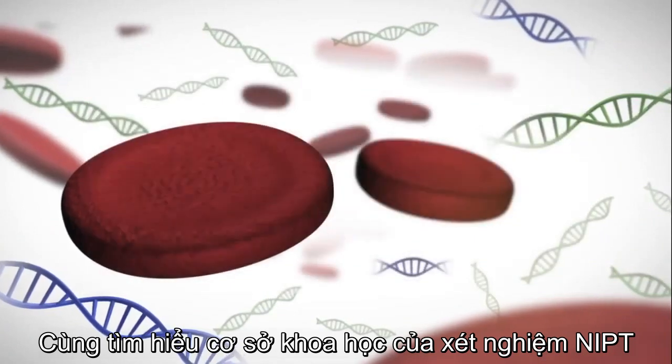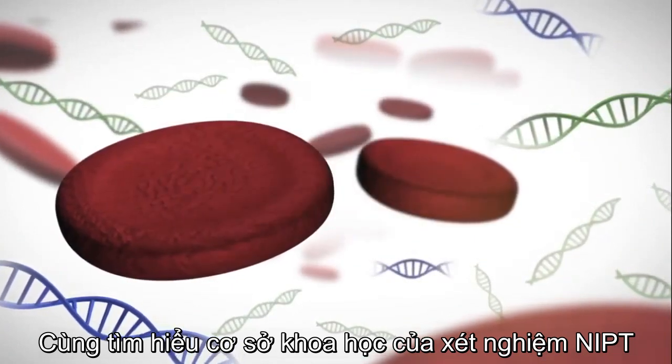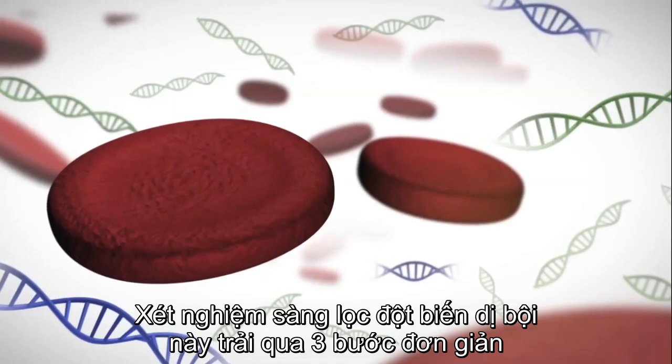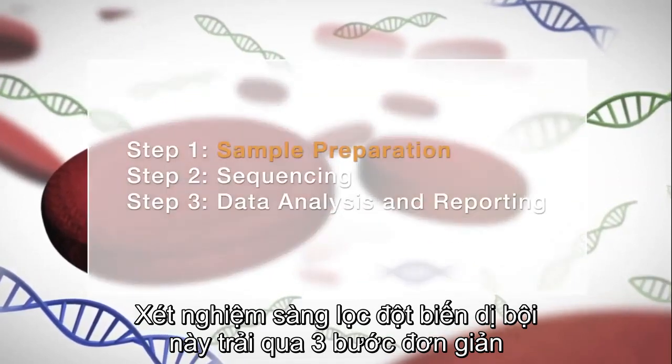See the science behind the VeriSeq NIPT solution. Screening for aneuploidy involves three simple steps.